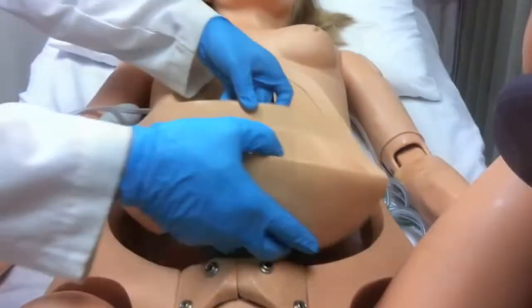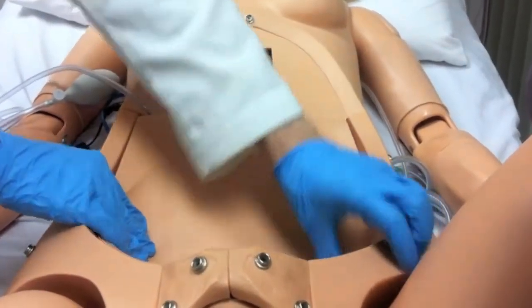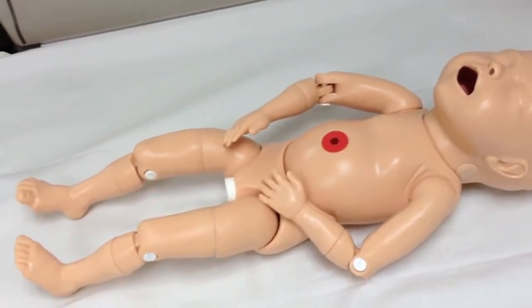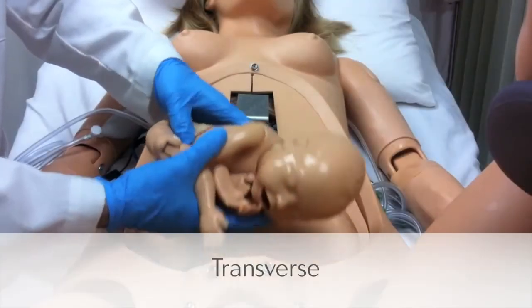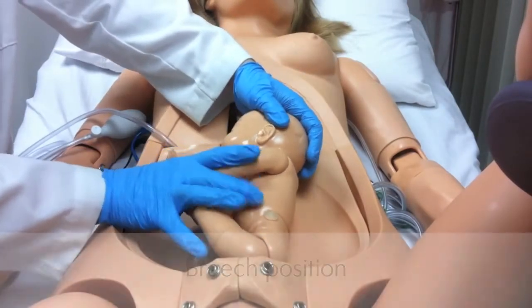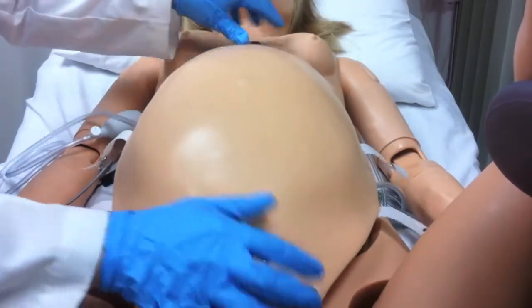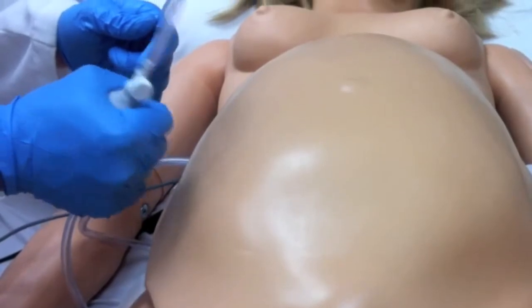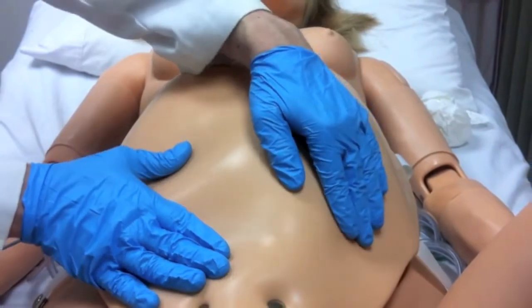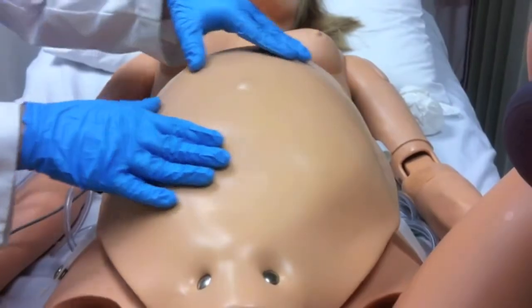NOEL comes with an inflatable base that, when placed into the abdomen, lifts the baby to facilitate Leopold maneuvers. The birthing fetus is highly articulate and can be placed in transverse, normal, or breech positions. Once ready to begin the Leopold maneuvers, you should determine if the head is up or down by palpating the spine, elbows, and knees.